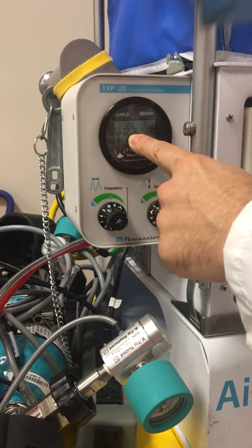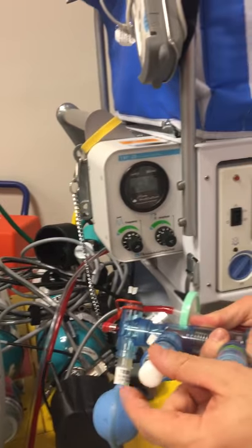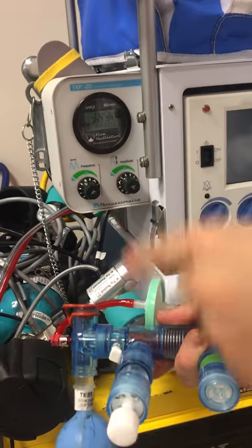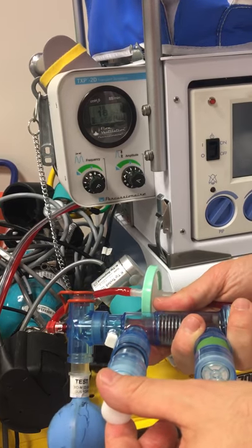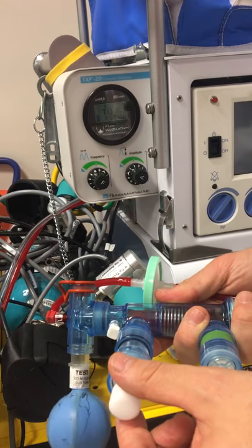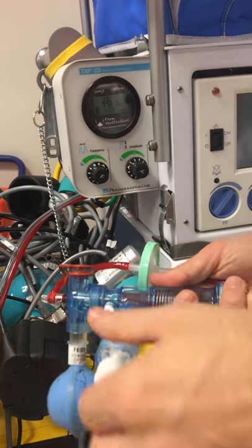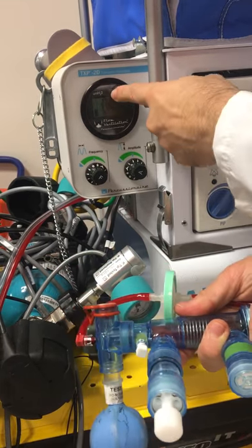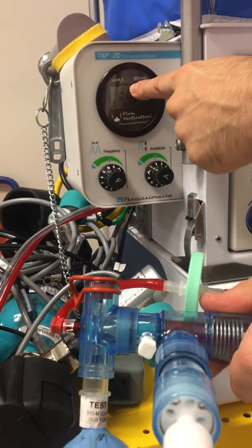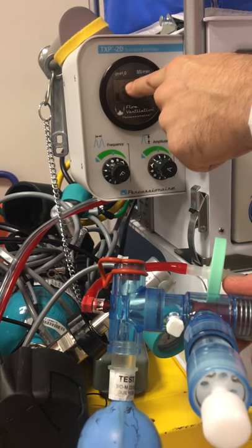This is our mean airway pressure. We control our mean airway pressure with our PEEP valve right here. As I open or close the PEEP valve, I'm changing my mean airway pressure. We're going to match the mean airway pressure that the patient is on when we pick them up, and monitor to make sure that these settings are working for them. We're not going to move right away. You see another number right above it, but that number will always be matching the mean airway pressure — it's called average inhalation pressure, and we don't have to concern ourselves much with it. We're really looking at mean airway pressure.